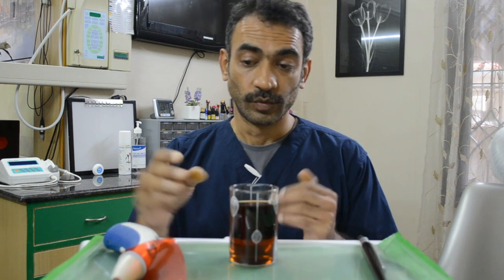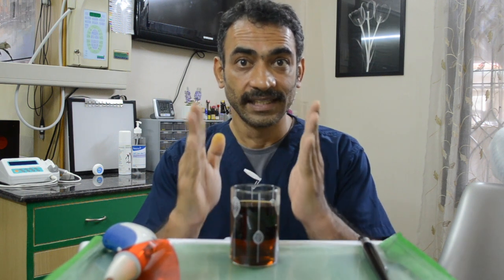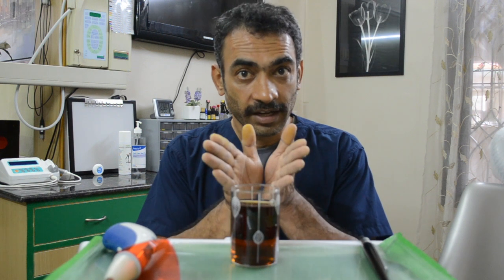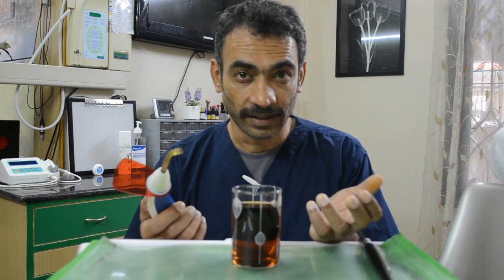That's your first step. Now having made your mixture, your next step is to test your curing light. What are you exactly testing for? You're testing for how strong the beam is and how collimated the beam is. Collimation means how straight your beam is — is there any diffraction of the light? Because curing is a very important part of restorative dentistry and we generally take this for granted.